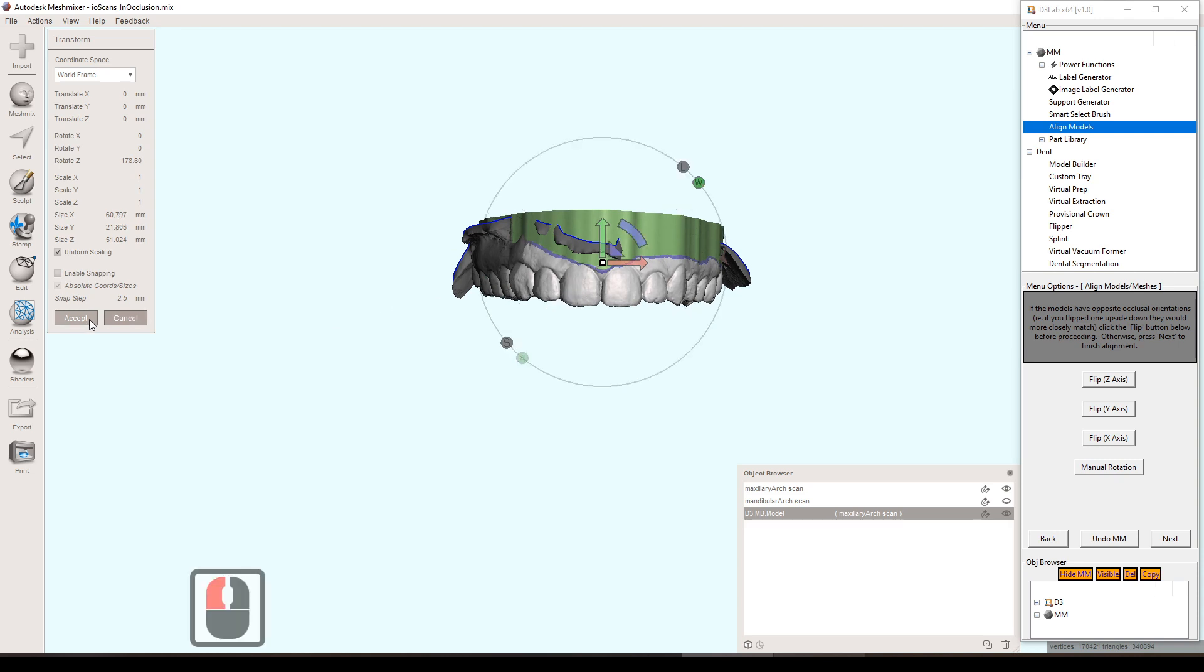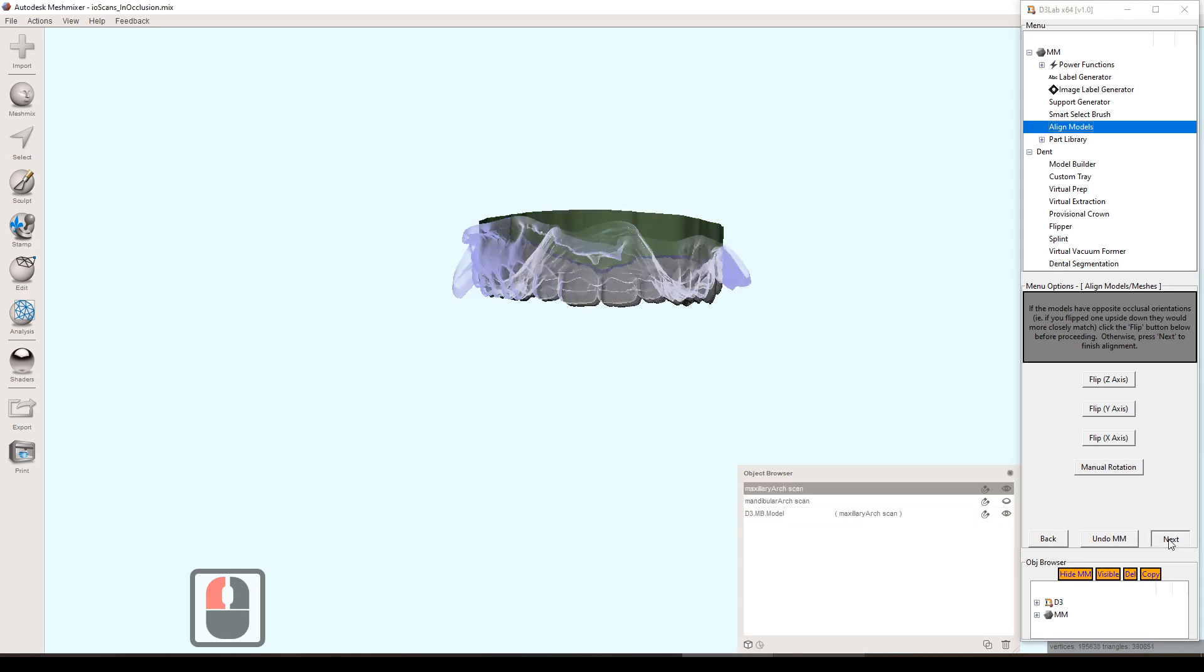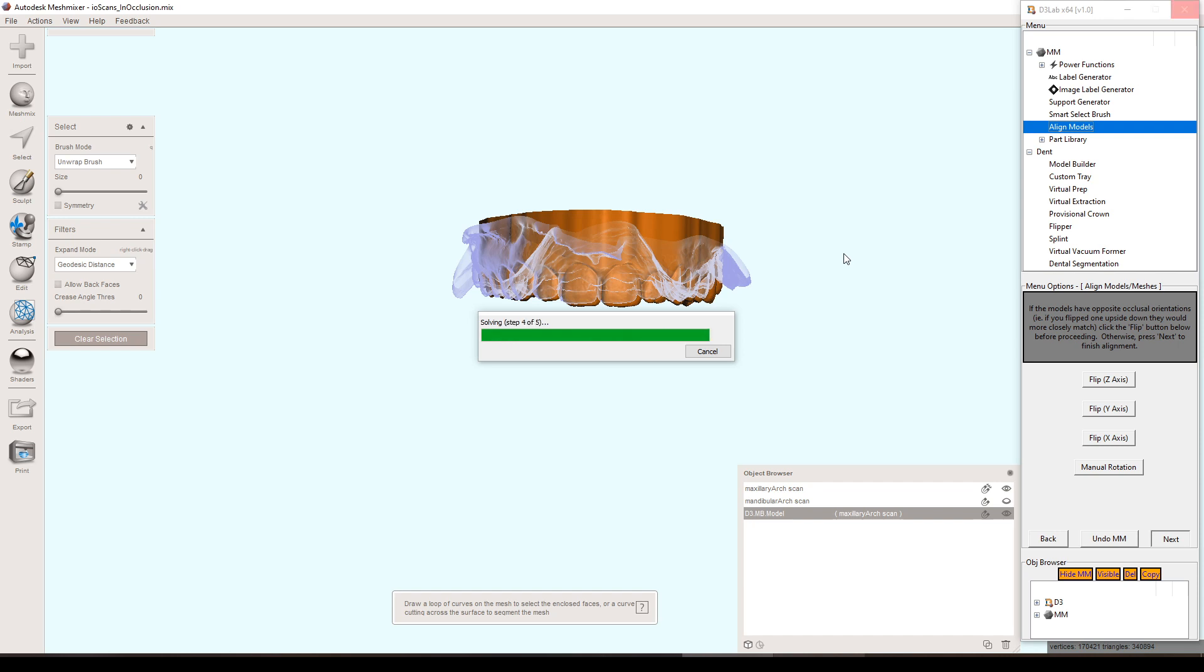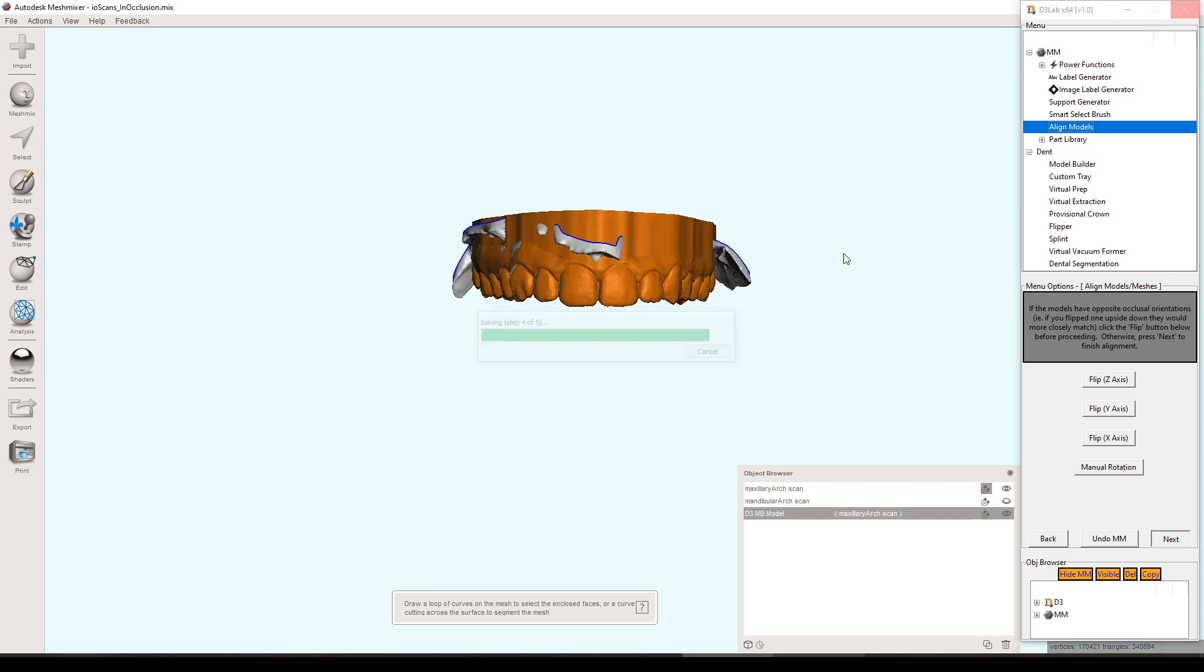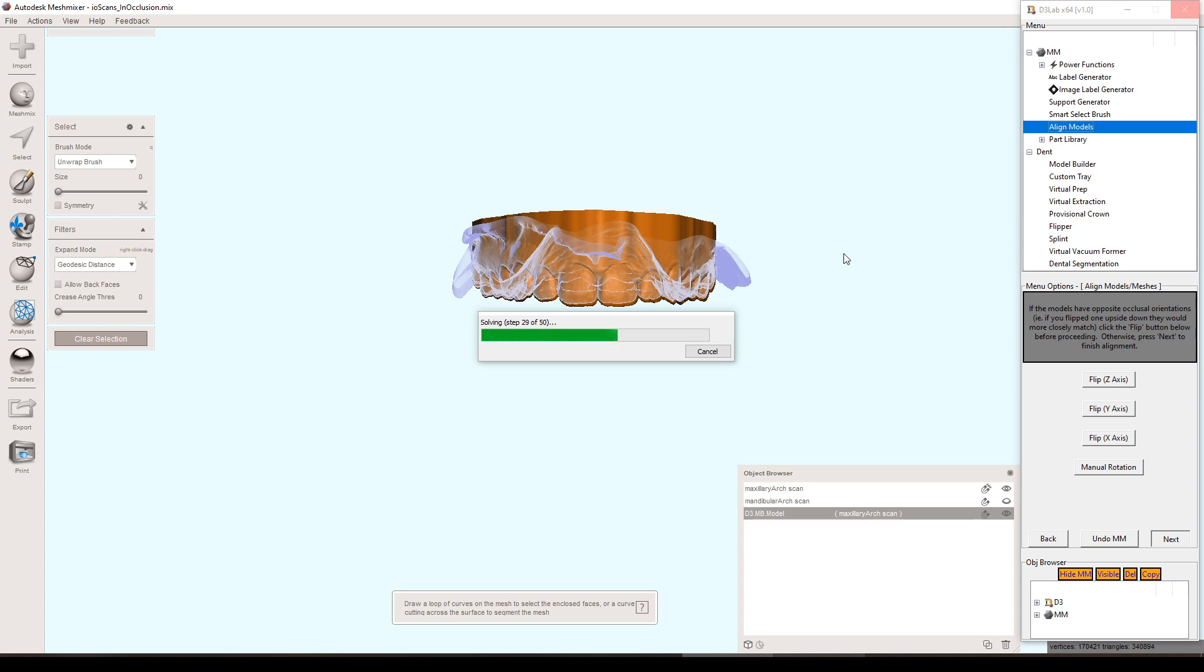And then from there, you need to kind of get it as close as you can to the original model, just to help things out a little bit. You hit next and it goes through a series of alignments and I probably overdid it to be quite honest. It does two rounds of it. The first round is 50 different iterations, which is kind of a lot anyways. But I just really wanted to make sure that this was as accurate as possible because you want the occlusion as accurate as it can be for many other tools down the road here. So I just wanted to be as safe as possible.